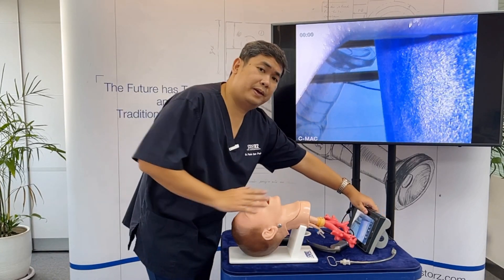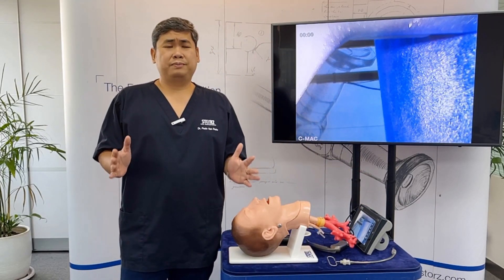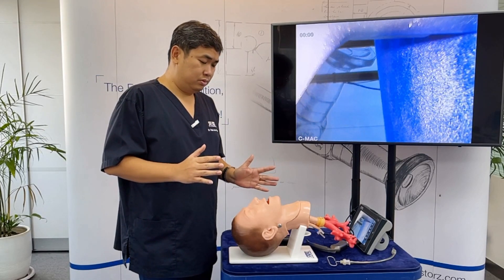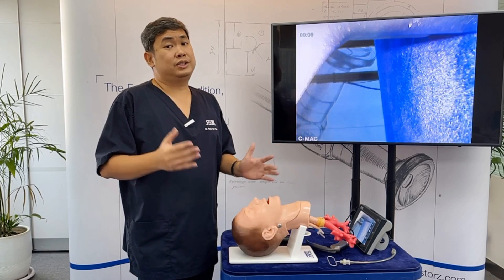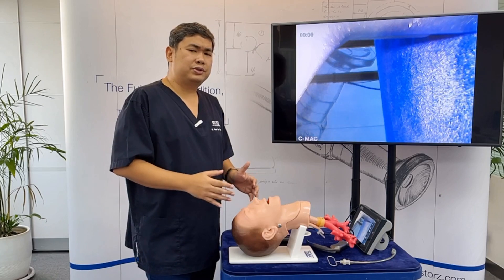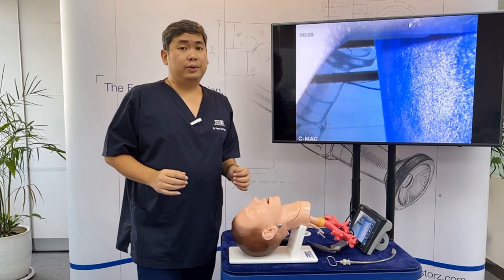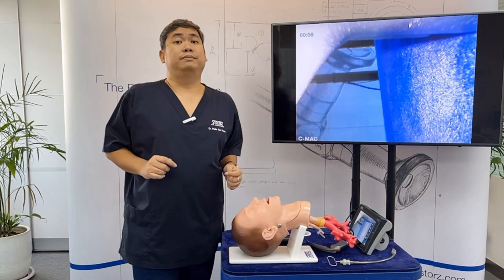Discuss the advantages of having a screen that everyone can see. First, you can perform a team approach to airway management. For example, if the intubator asks you to perform a laryngeal maneuver — either a BURP or a SELLICK maneuver — it can sometimes be counterproductive to the person intubating. But if you can see the effect of your maneuver on the screen, you know that you're helping the doctor.